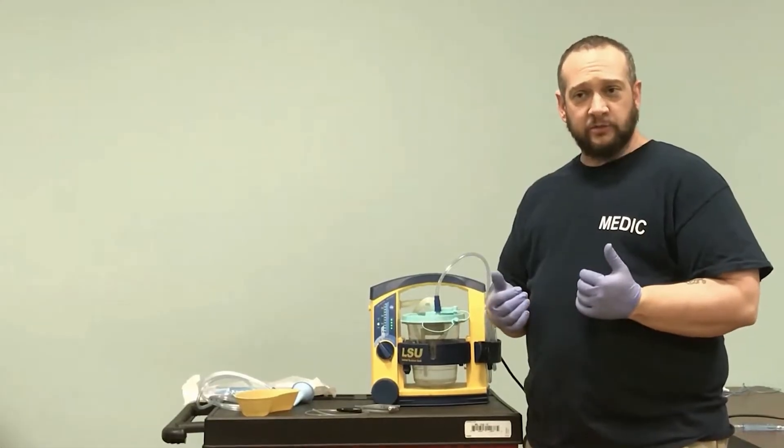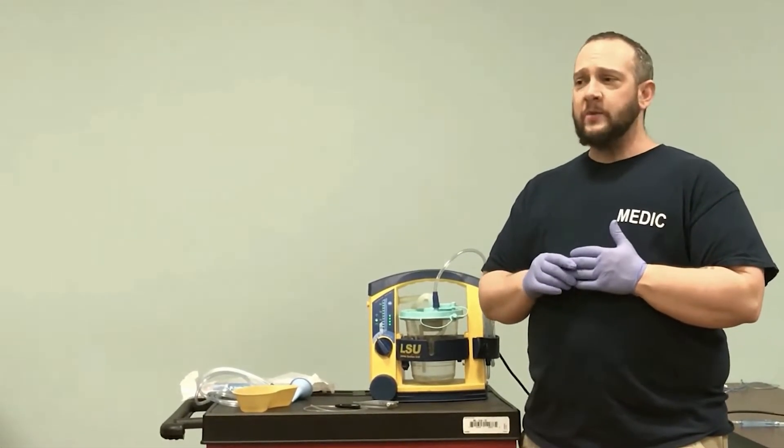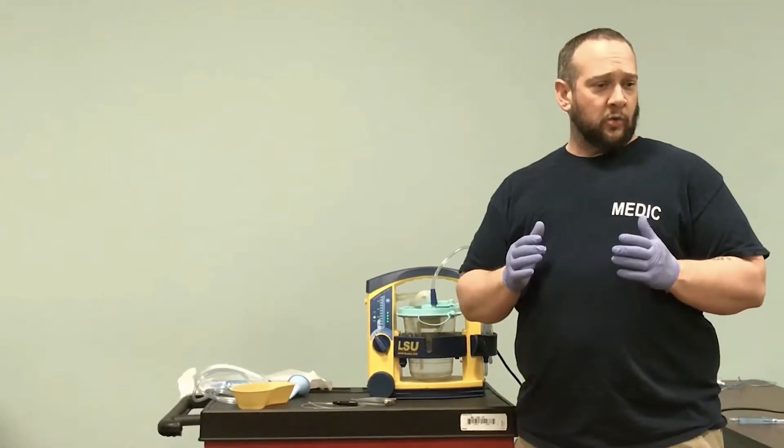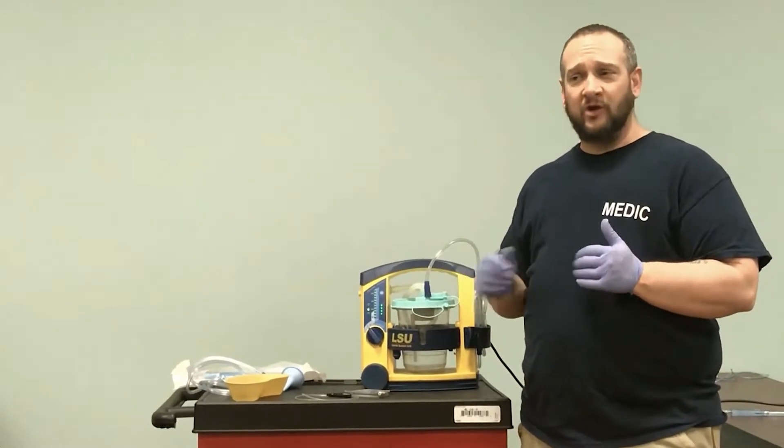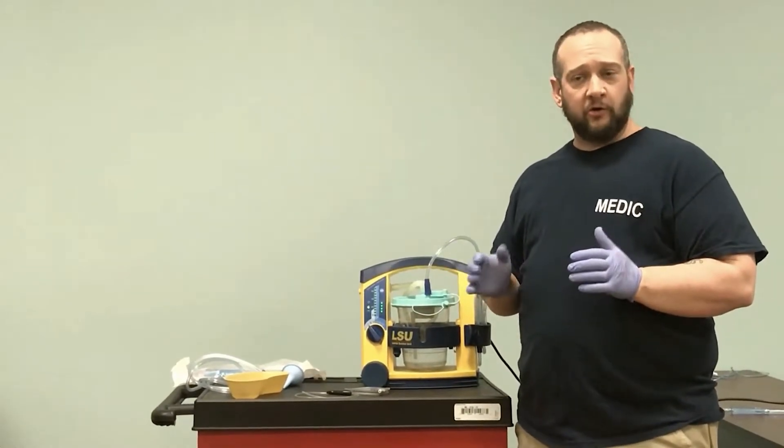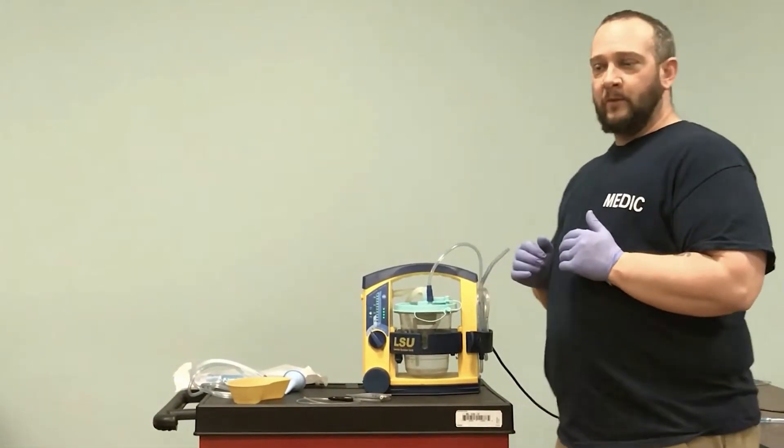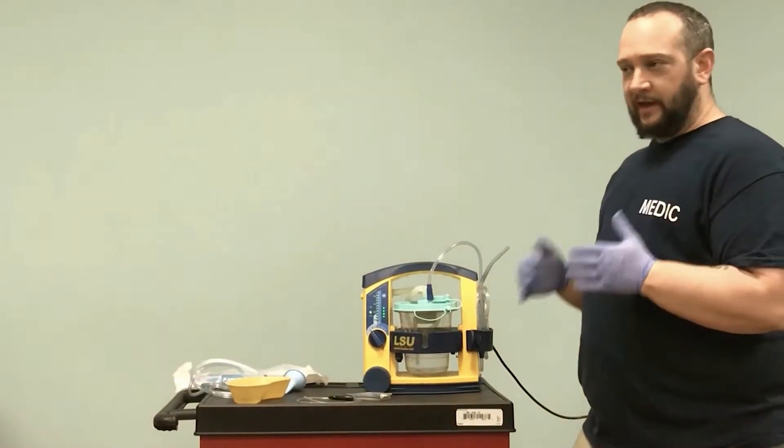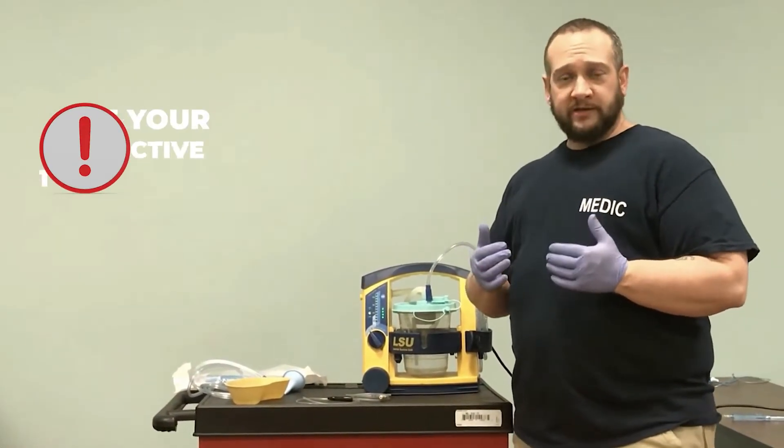Everything comes packaged fresh. In the ambulance, be careful where you're putting things. If you take it out of the package and put it on the bed or counter, it's no longer sterile. We never want to introduce infection into somebody's airway, so use aseptic technique as best we can.